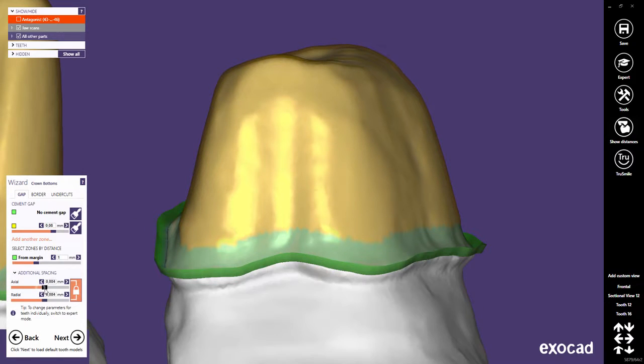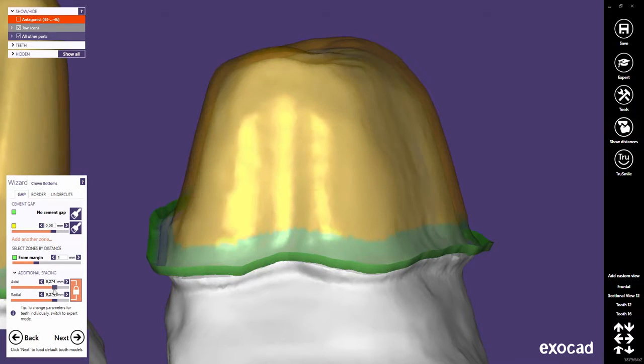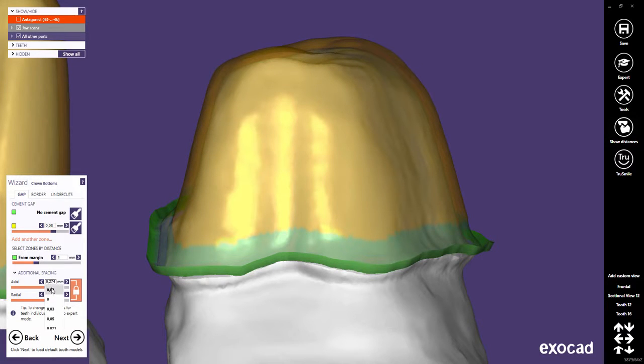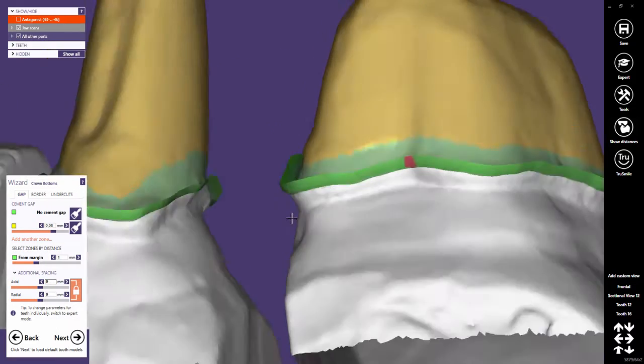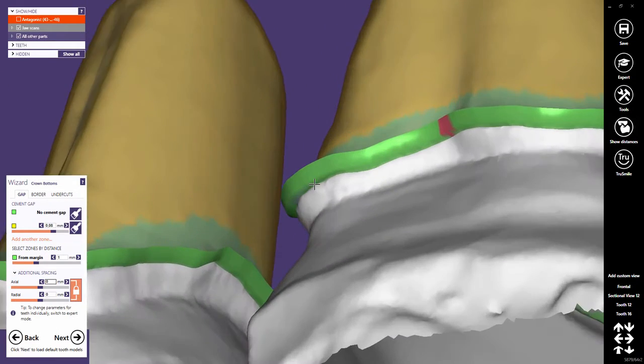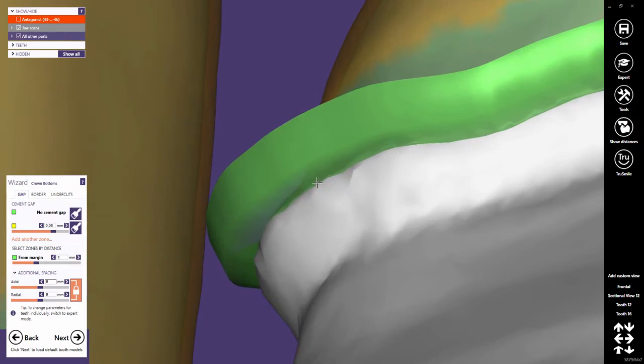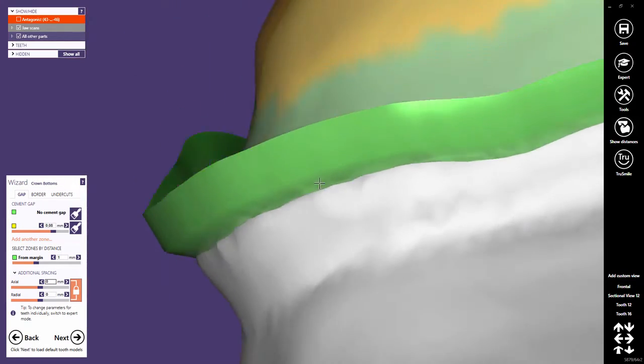The higher values are here, the looser the fitting. Setting this parameter to zero means that the green area and the margin will have no gap.